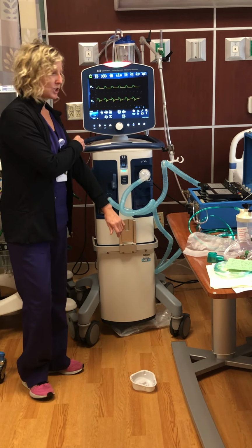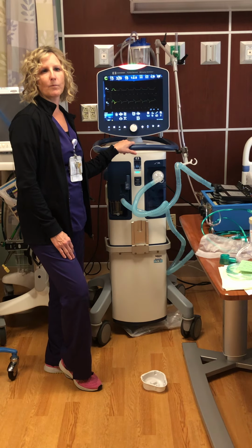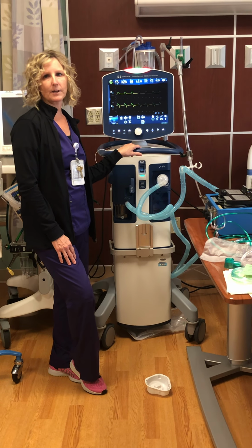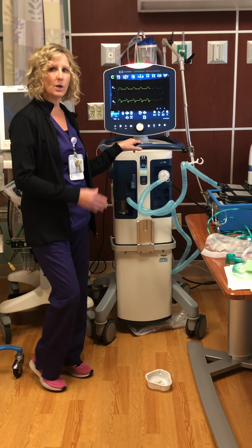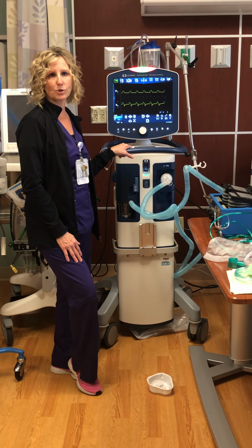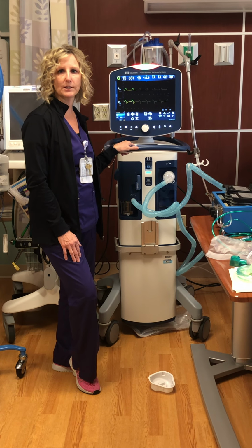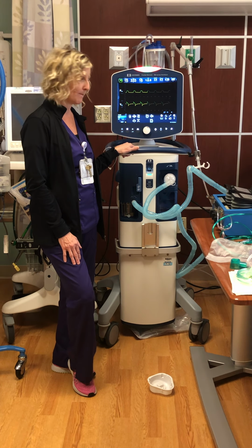A couple of things that I wanted to touch on is if you have a vented patient and you're going for transport, for our policy, respiratory therapy requires that when we place them on the transport vent, we do it for a 15-minute time frame. That gives us enough time to make sure that the patient's going to be able to tolerate that different ventilator. We put them on the same settings, but the vents are different, and that way we can see if there's any issues before we actually remove the patient from ICU setting and take them on a road trip. So if you know you're going to be taking the patient for a CT or MRI, give us at least 15 minutes. We can get that vent set up.